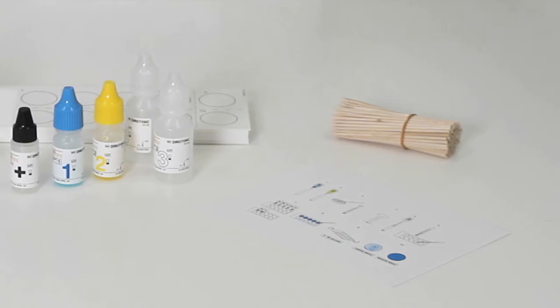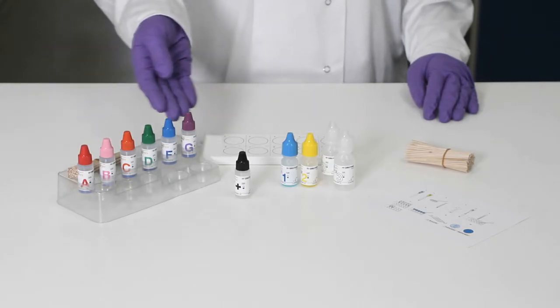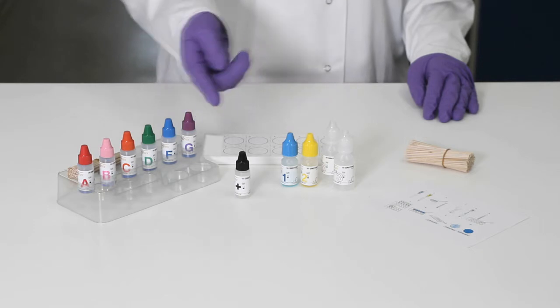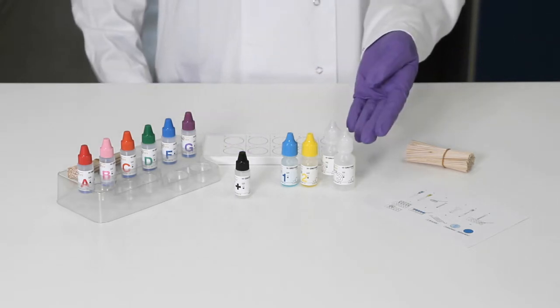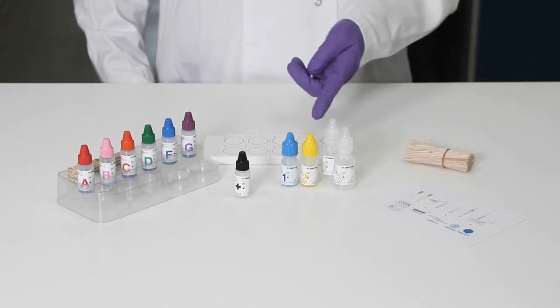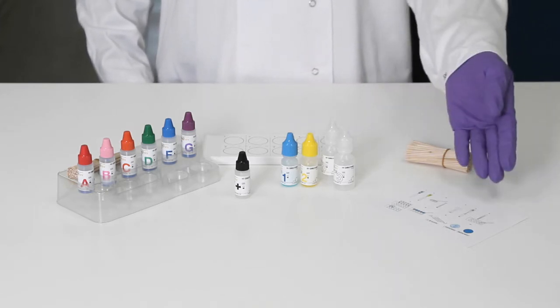You'll find the following items in the kit: group reagents, positive control, extraction reagents, reaction cards, mixing sticks, and procedure card.